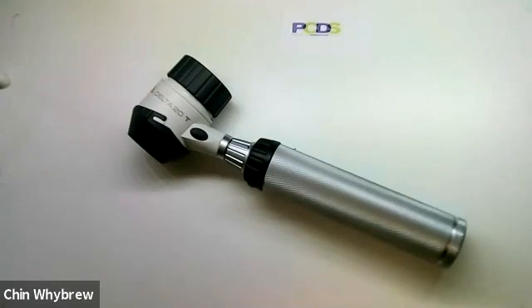So as I say, I'm just showing the equipment today. To learn how to use it and to interpret what you see, please do come along to one of our Dermoscopy for Absolute Beginners courses. We also do intermediate and advanced dermoscopy, and lots of general dermatology courses, all of which can be accessed through the website pcds.org.uk. So that was the Heine Delta 20T.